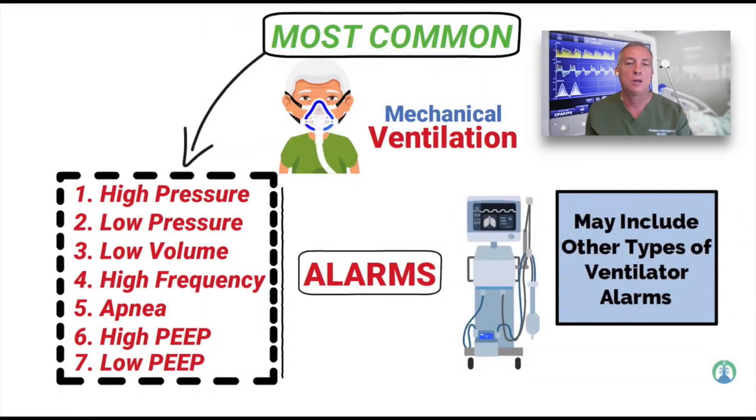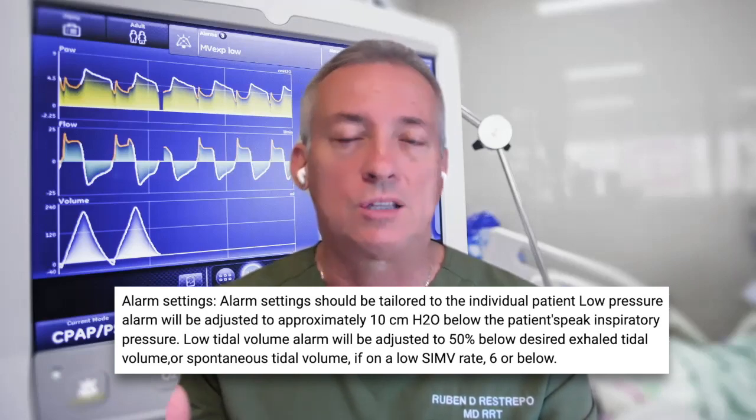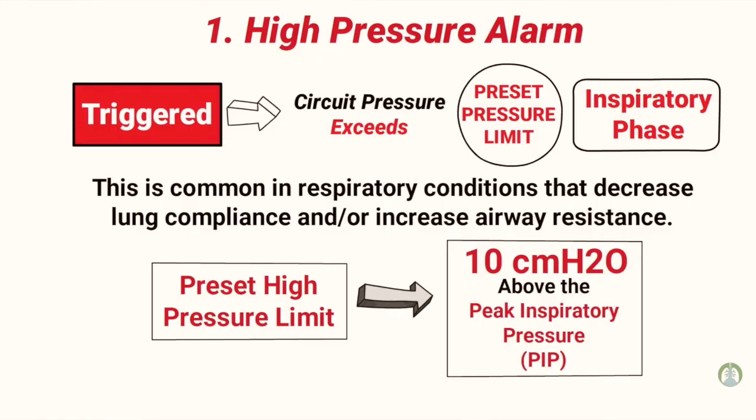When you're asked about setting your alarms, keep in mind that there is really no good set of rules. No mechanical ventilator company recommends alarm settings, and it's very hard to find true data on where they need to be set. While you want to avoid alarm nuisance, you want to make sure the alarms are set at least at 50% for minute ventilation, respiratory rate, and so forth, and typically no more than 10 to 15 centimeters above the peak pressure. The low minute volume alarm, once you set up the patient, honestly should be as close as possible to what you see on the minute volume, because otherwise you will encounter a leak.